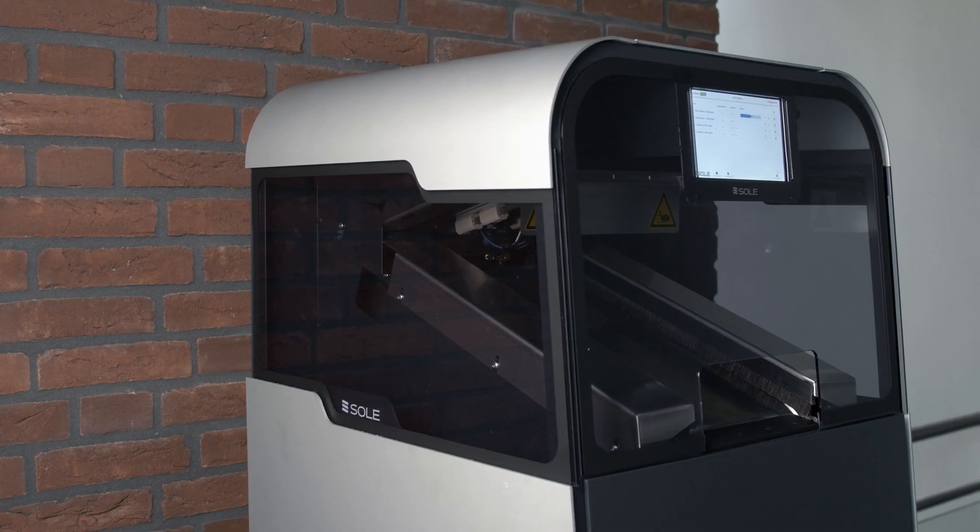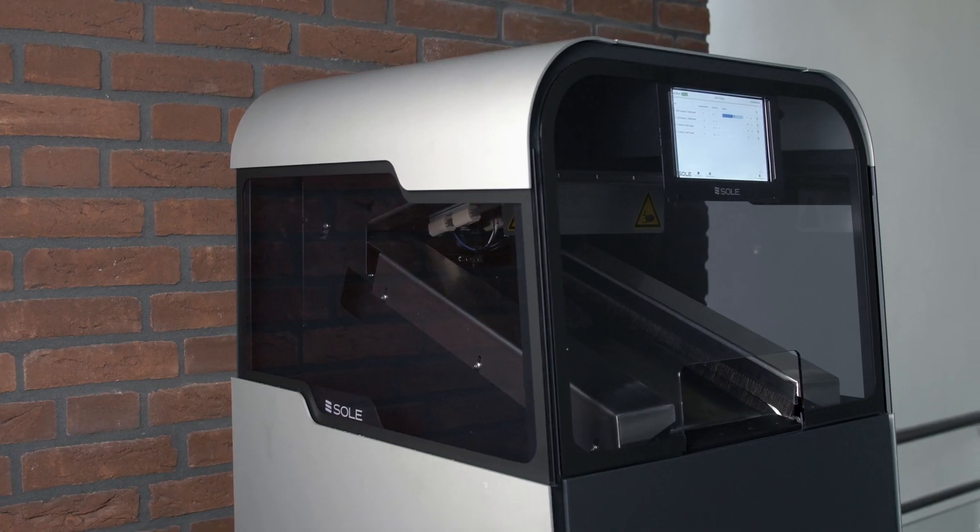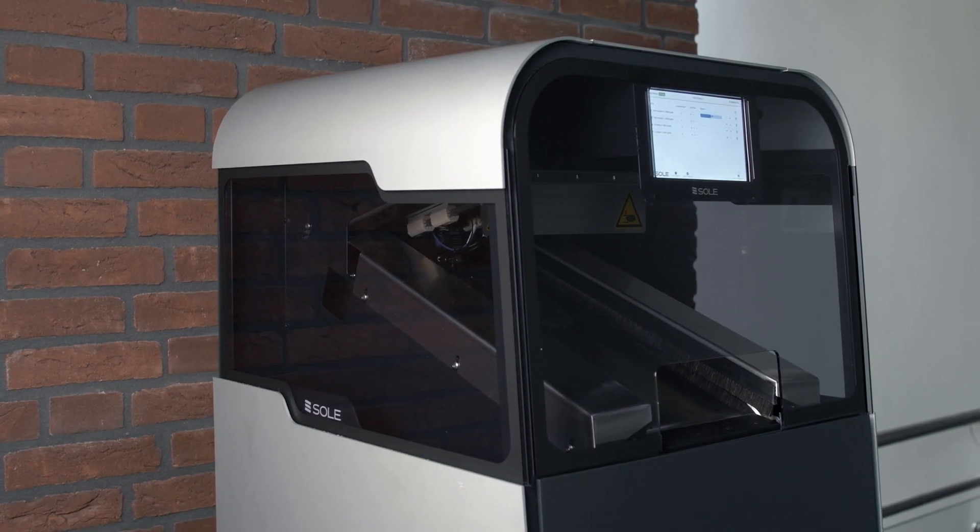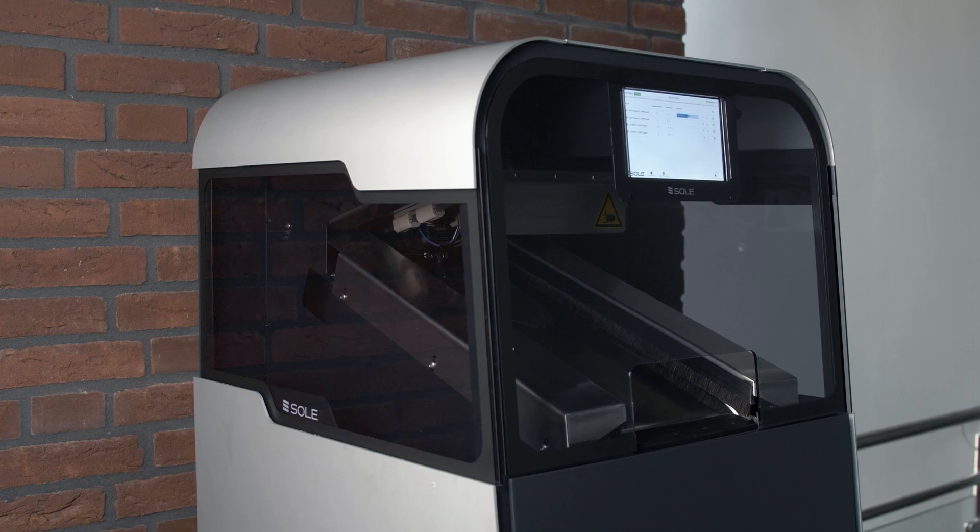Hi! Insole manufacturing was never this easy. Here's a brief overview of our workflow.